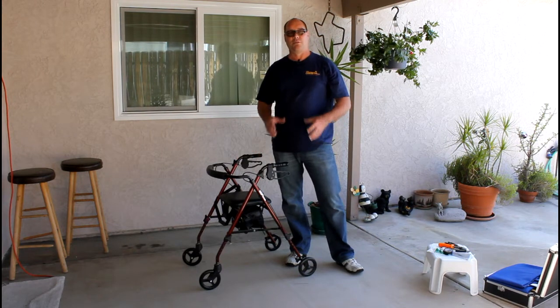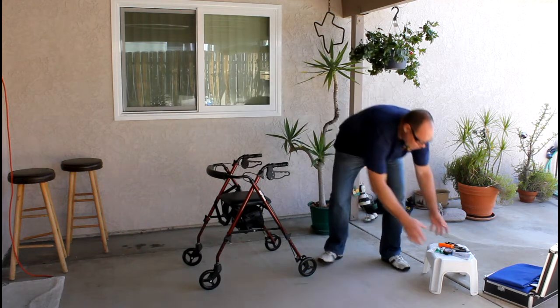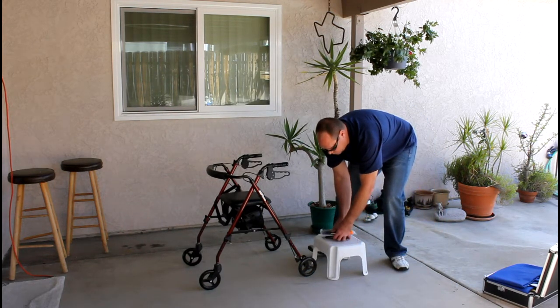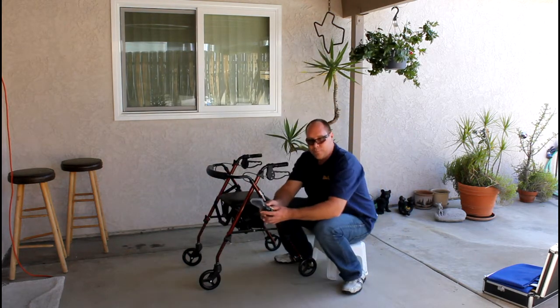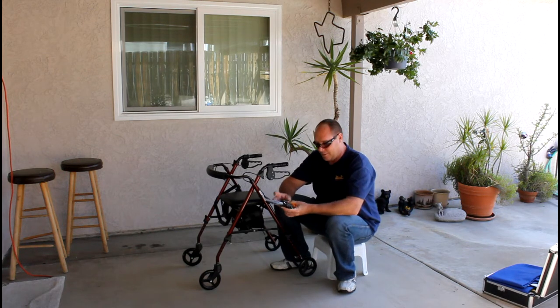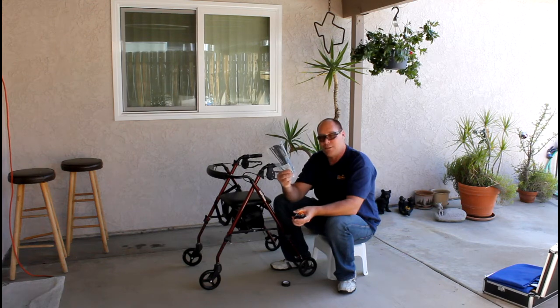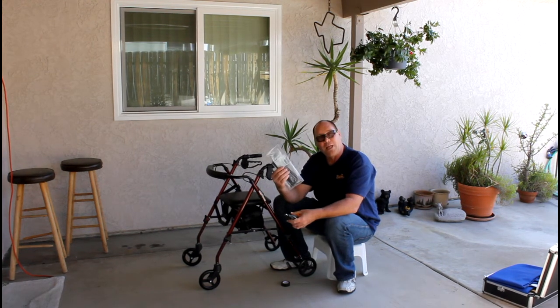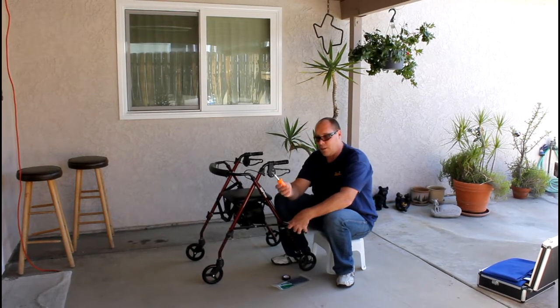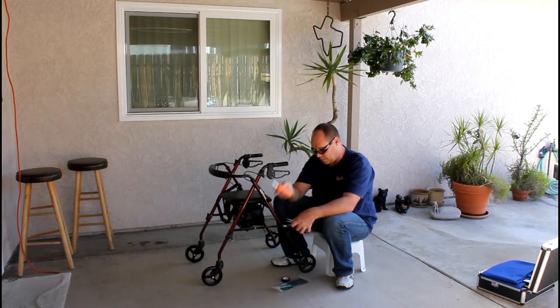Let's talk about the tools needed to make walker adjustments. I bring a little chair with me when I do this type of work — it allows me to get down lower to the components of the walker. Here's what we need: black tape, some zip ties — I typically use 8-inch zip ties, black is most common but clear works too — and a standard Phillips screwdriver with a reversible head, so it'll go flat head and Phillips.